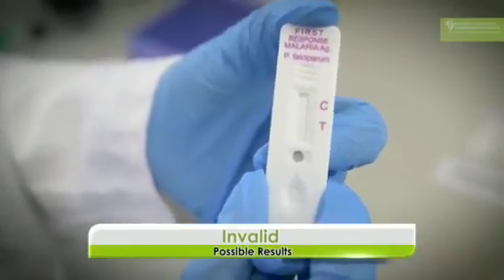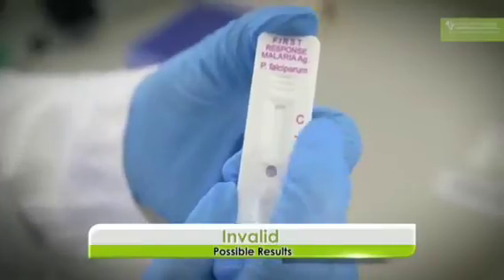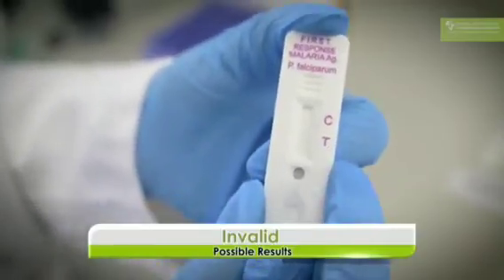This is another example of an invalid test because neither the control line nor the test line have come up, and you can only call a test if a control line has come up. You have to call this invalid and you have to repeat the test. So you have to start the whole process again with a new rapid diagnostic test and wait till you get a result, because you cannot send a patient off without a result, whether it is positive or negative.